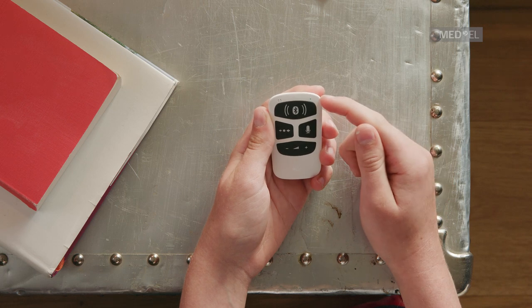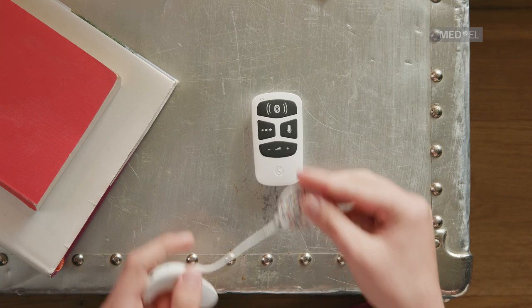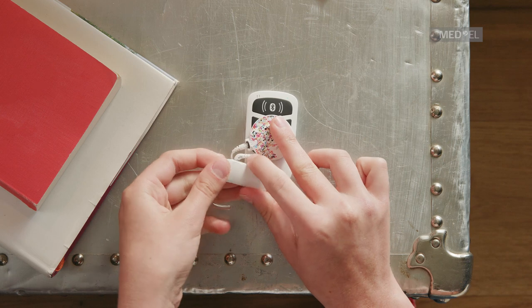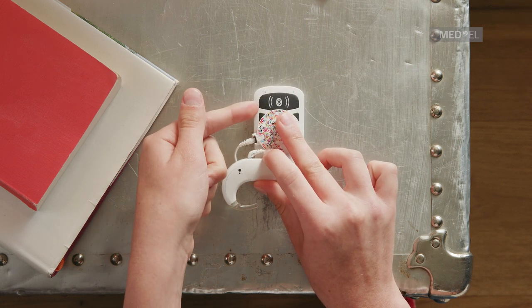Place the coil over the center of the keypad. Switch off the processor and then back on. When it's successfully paired, the left and right connection symbols will light up.